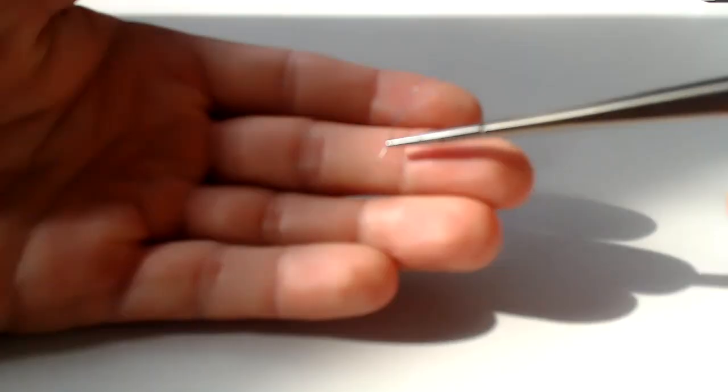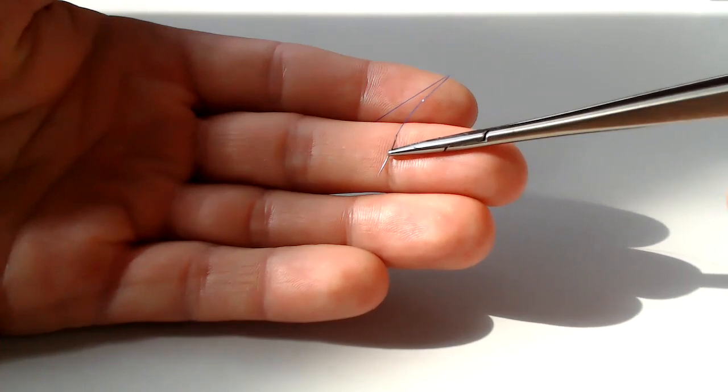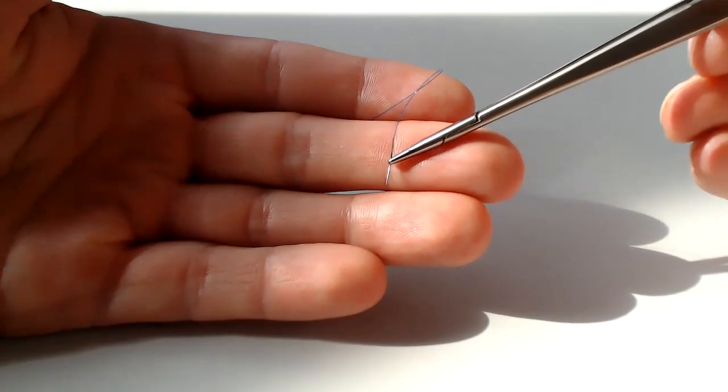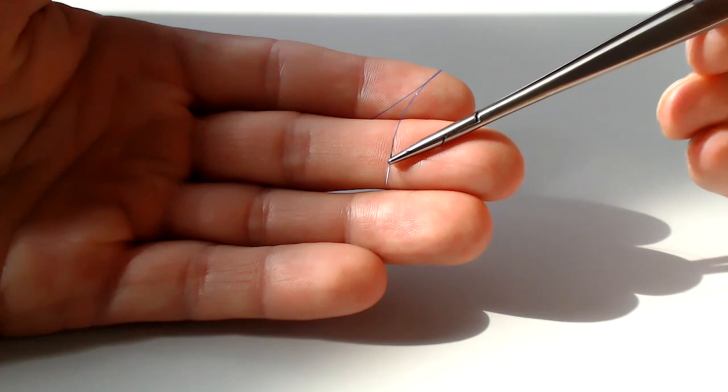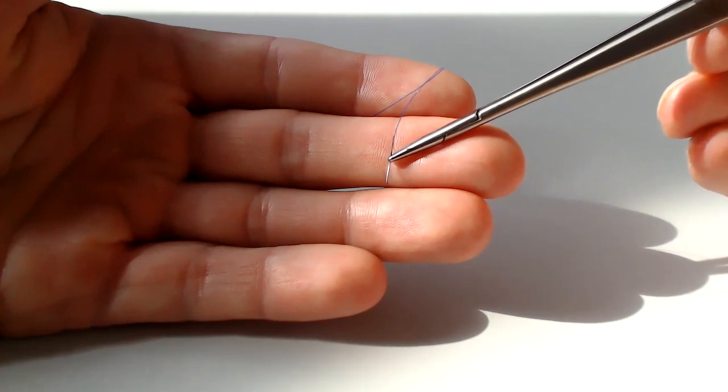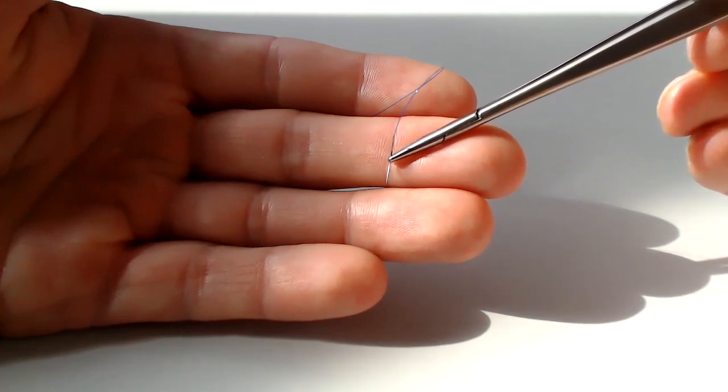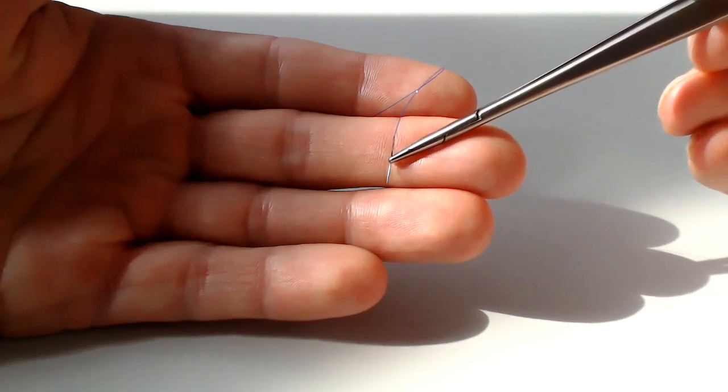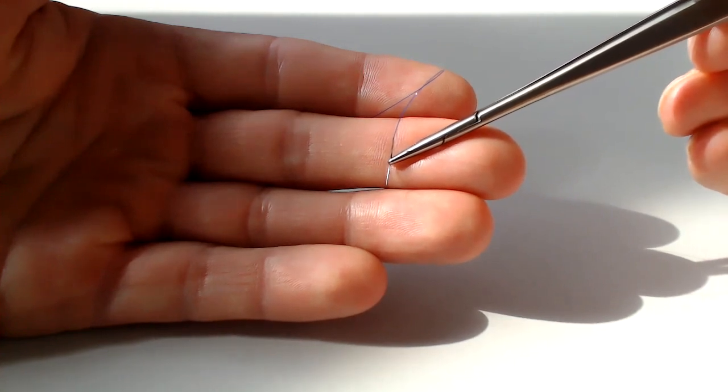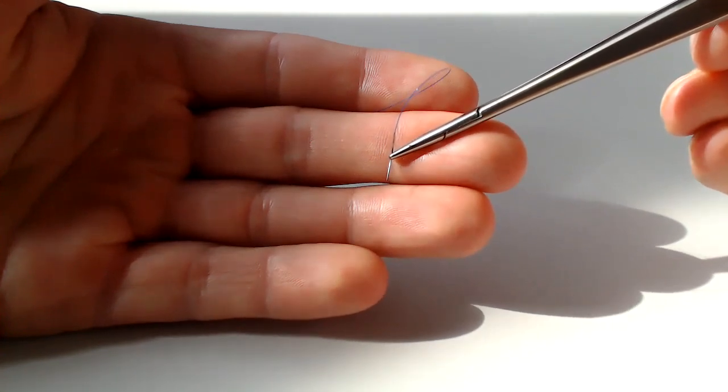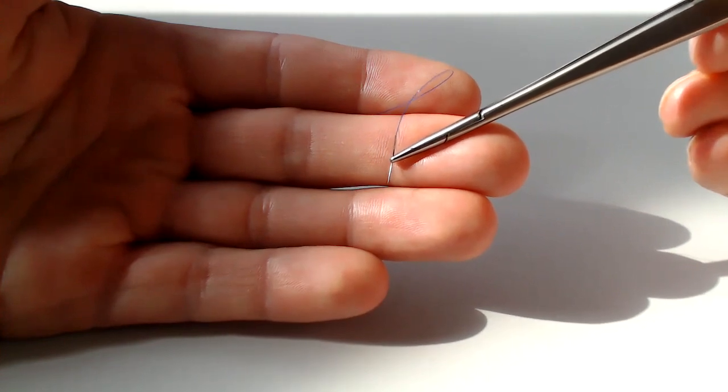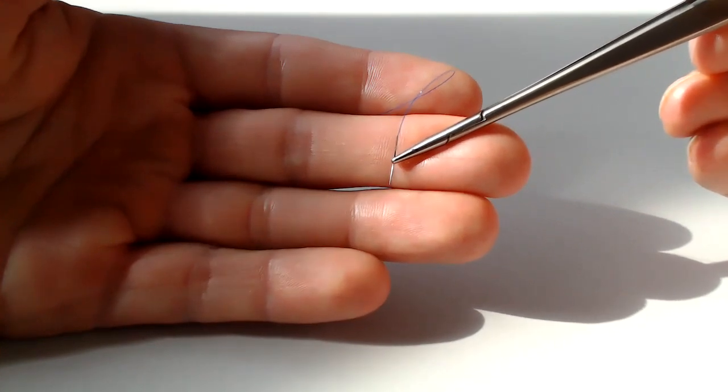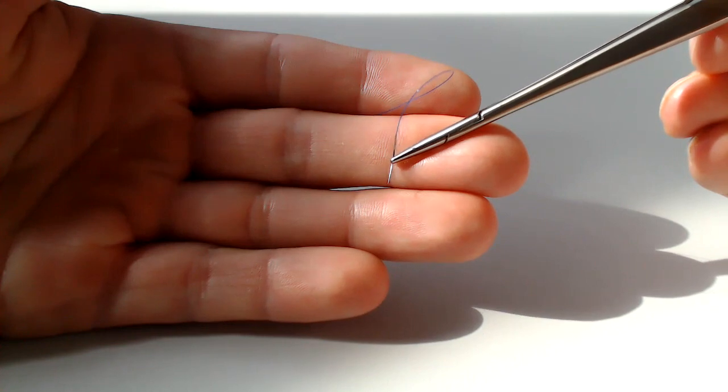First, a few general points, main points. In general, the Castro Viejo needle drivers, the optimal load, if you look top down on the needle, you can see that I have it loaded up as a 45 degree, more or less, forward angle, forward cant, K-A-N-T.